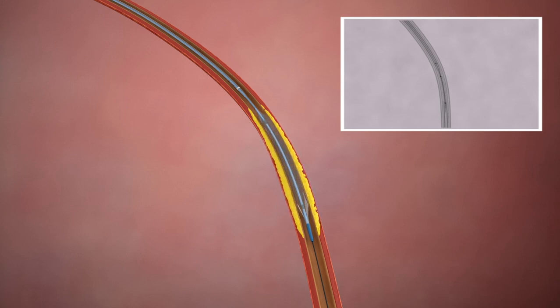After the lesion is treated, the catheter can be retracted to perform completion angiography or even performed with the deflated balloon left in position.